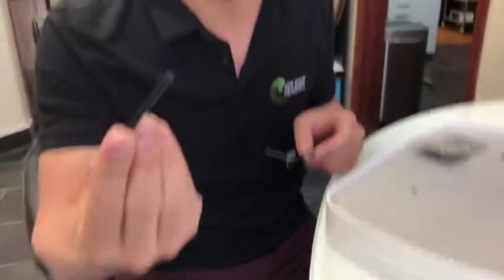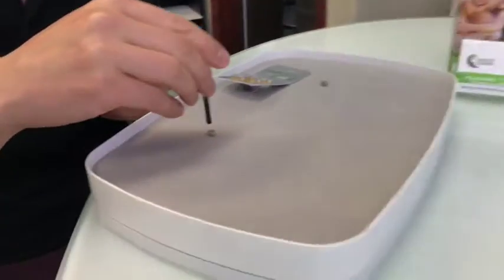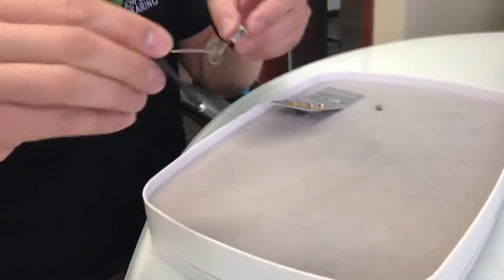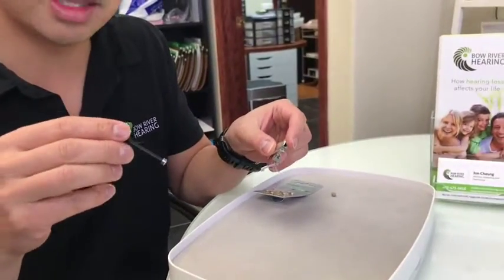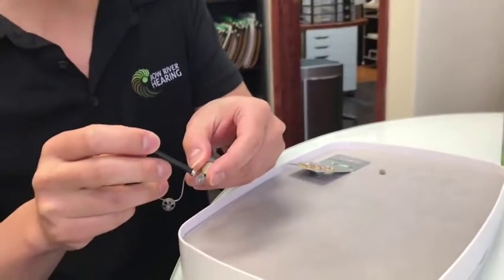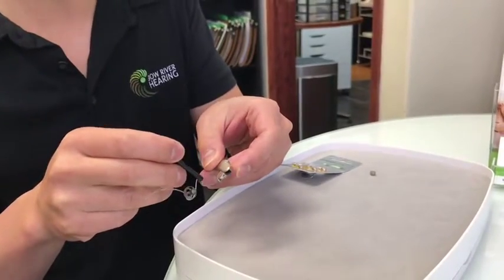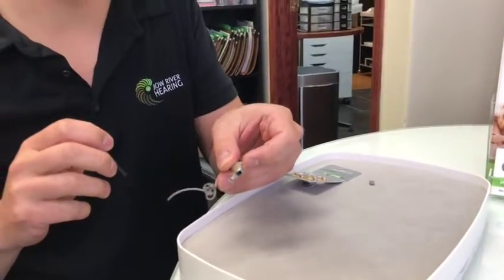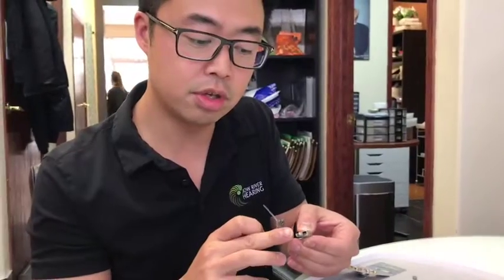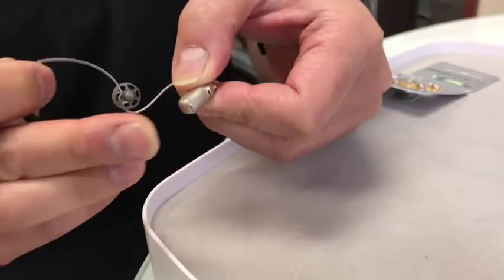What I'll do is take the magnet we used before to pull it out and just touch it on the top of the battery. Then, with the door all the way open, I'll slide it in — and if you just pull right across, it's really easy to get that in there. Then the last thing to do is just close this door all the way shut, and then pop it into your ear.